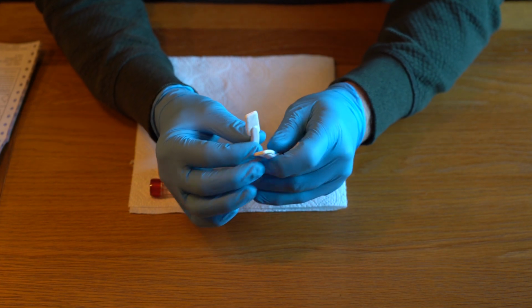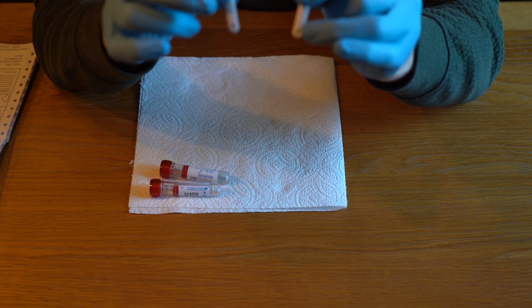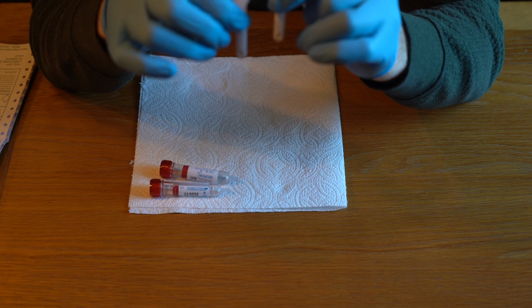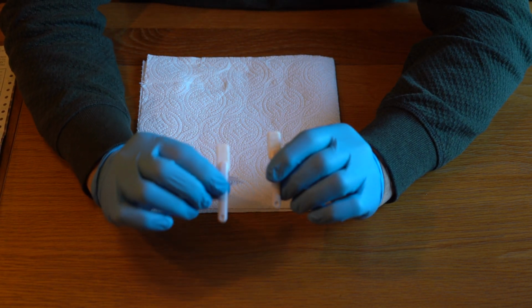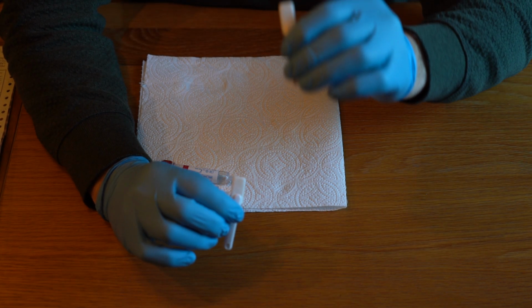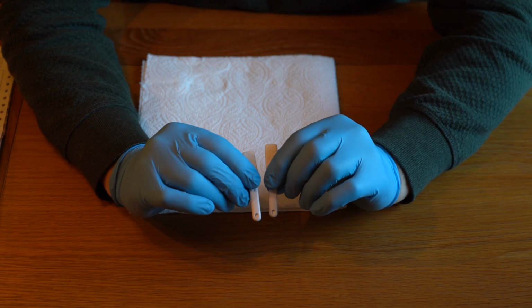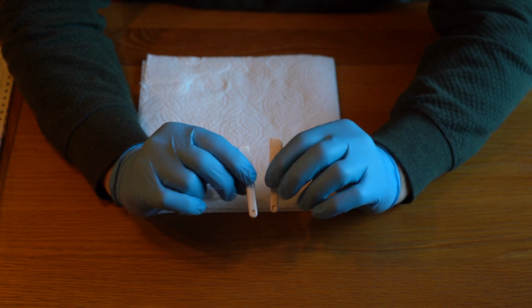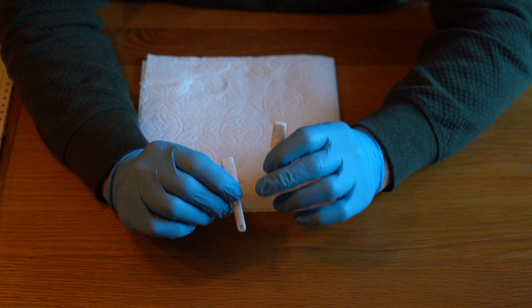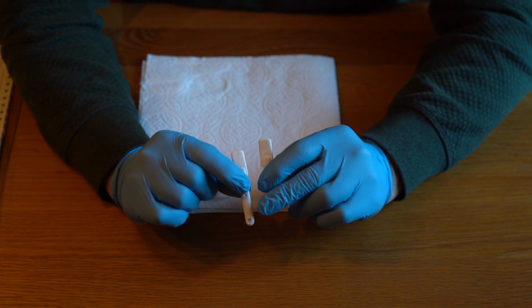And I'm not so sure whether you'll be able to see this or not on screen, but at the bottom there there's a little window, and at the moment that's white. So what I would ask the employee to do is put these both in their mouth. They'll stay in their mouth, they'll be moved around the tongue, so 30 seconds on the top of the tongue, 30 seconds on the underside of the tongue. So we move it around the mouth, and what we're looking for is for that little window to turn blue. Once that's turned blue, I would take one out of the mouth, prepare it to send to the laboratory while I leave the other one in the mouth. And then once I've finished the first one, I would then take the second one out.